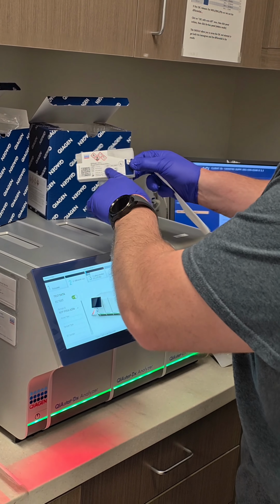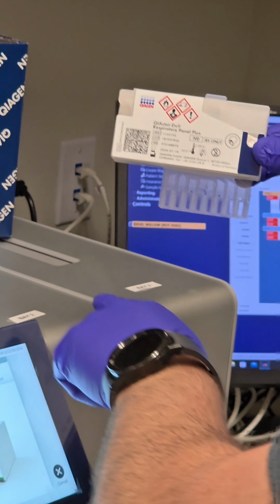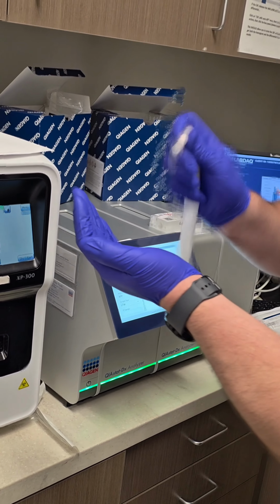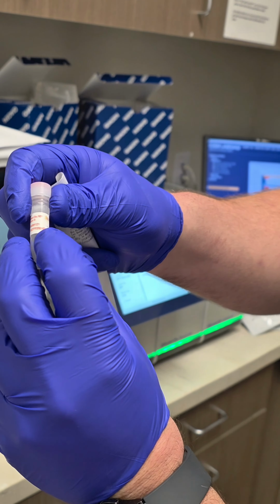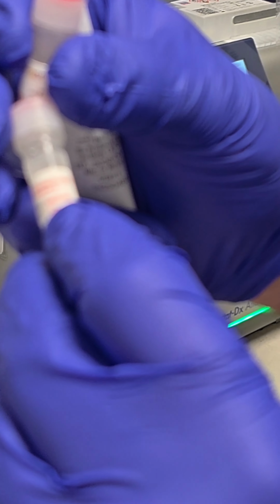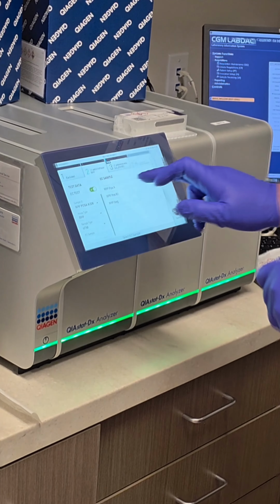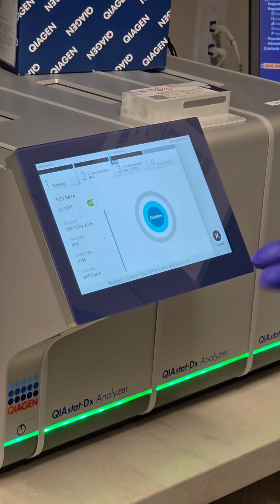So now we'll get out our respiratory panel. Make sure we're not getting the GI panel because we want to do the respiratory now. We'll scan our respiratory panel. It's going to get everything there. Let's look for our respiratory RPP positive A. Mix it up real well. If you forget the doses on here, it'll tell you right there: 300 microliters. And on the GIP, you can see right there 200 microliters. Get this mixed up real well. Okay, let's hit RPP positive A.